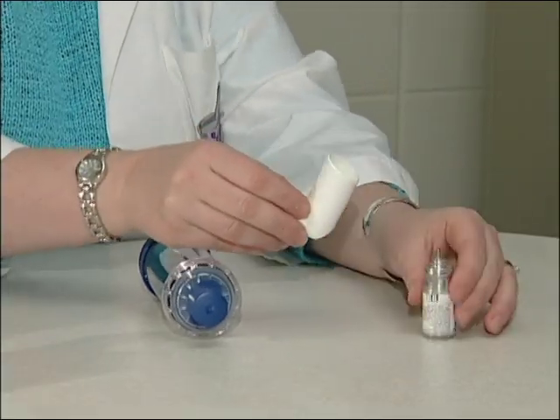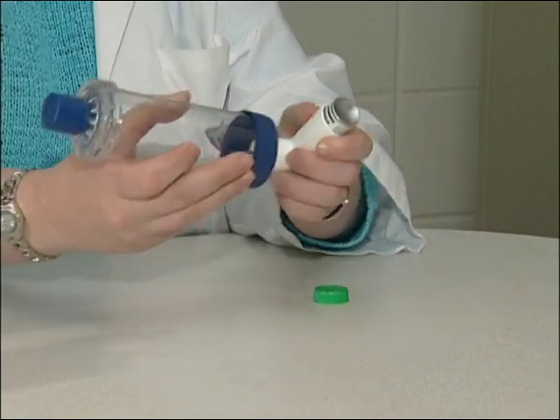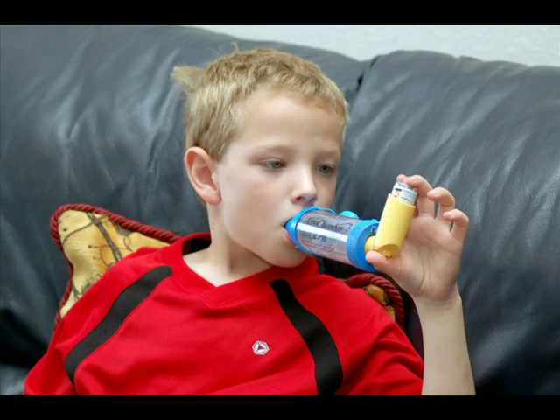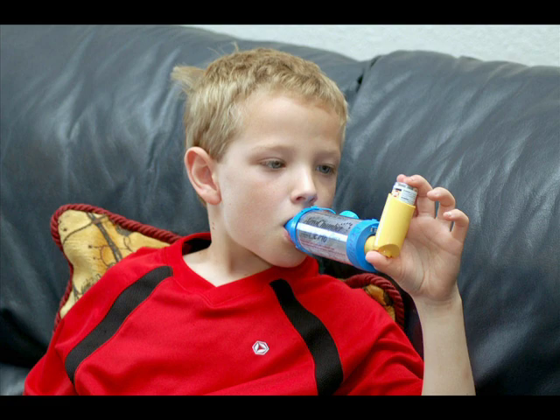For many patients, it is difficult to inhale the full amount of medication quickly and difficult to handle the small inhaler device. A device called a spacer can be attached to the end of the MDI to allow more time for the patient to inhale and provide a larger device to hold. A similar device called a holding chamber can also be attached to the MDI; this device holds the medication in the chamber so a patient can inhale the medication using several breaths. This can be especially helpful in patients with small or tight lungs such as children. Some holding chambers will actually whistle if the patient breathes in too quickly, reinforcing the habit of breathing in slowly to get more medication into the lungs.